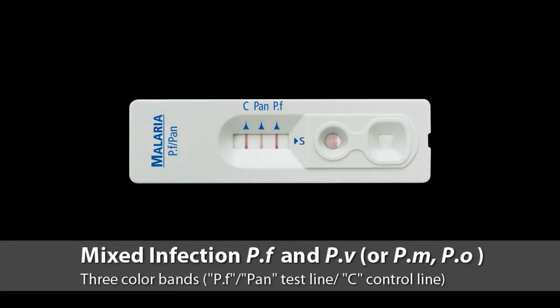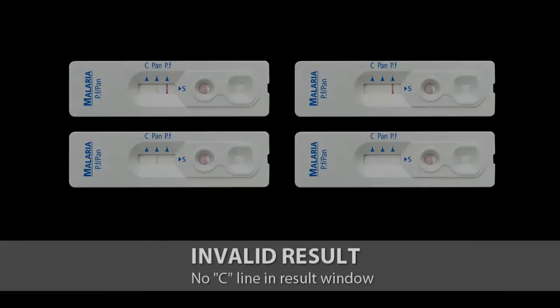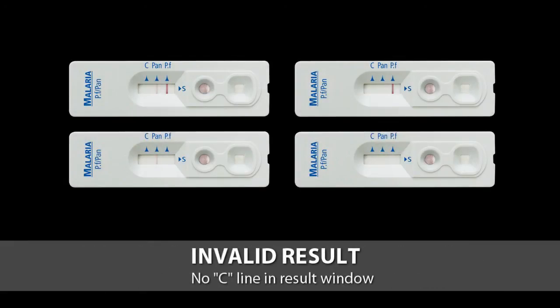Also, you can see 3 color bands on Pf, Pan and C line. It means mixed infection. If no line appears near the letter C, conduct the test again with a new test device and new inverted cup.